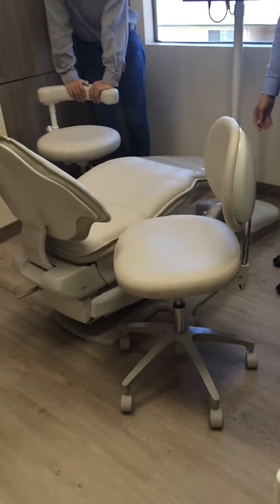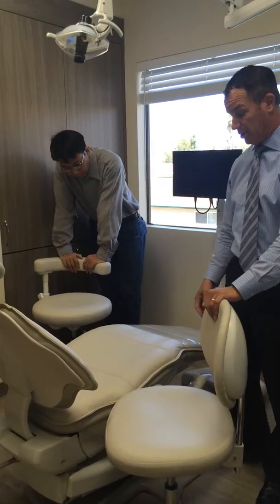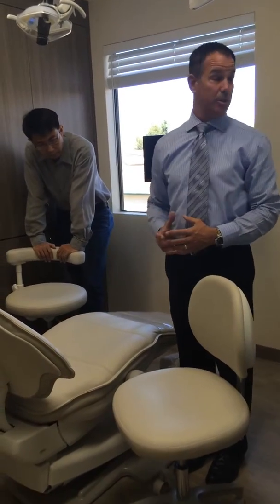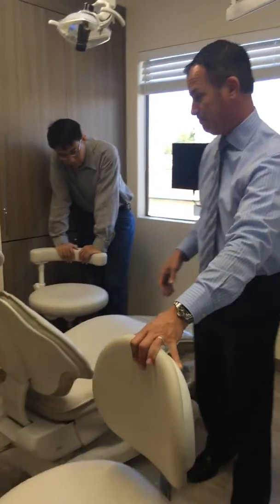But it also gives me the ability, if I'm seated, that the casters can actually get in closer. Okay? So that you're not stepping on the side of the foot base of the chair, but you can also get in closer because the chair allows you to. The idea is we don't want you working out here, we want you working here next to the patient. Okay? All about ergonomics and keeping everybody's back healthy, right?